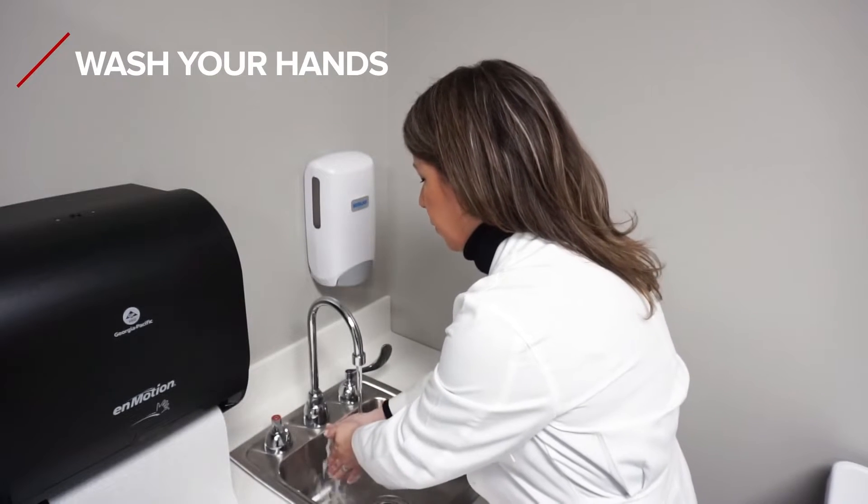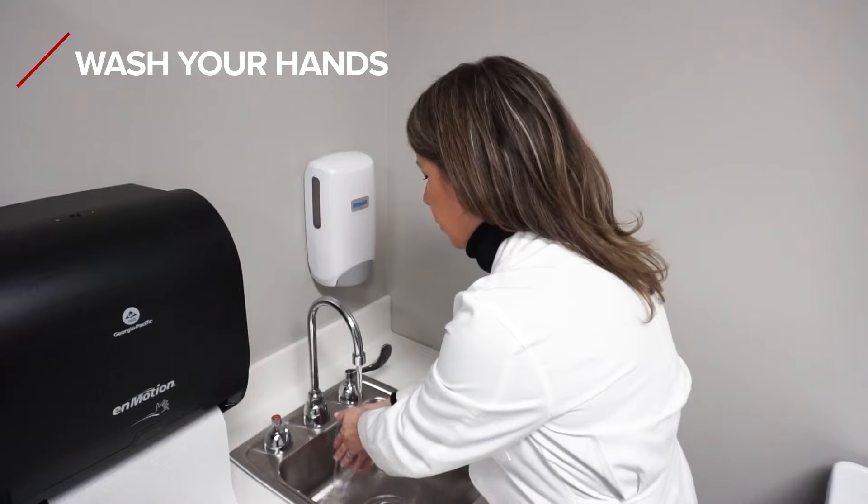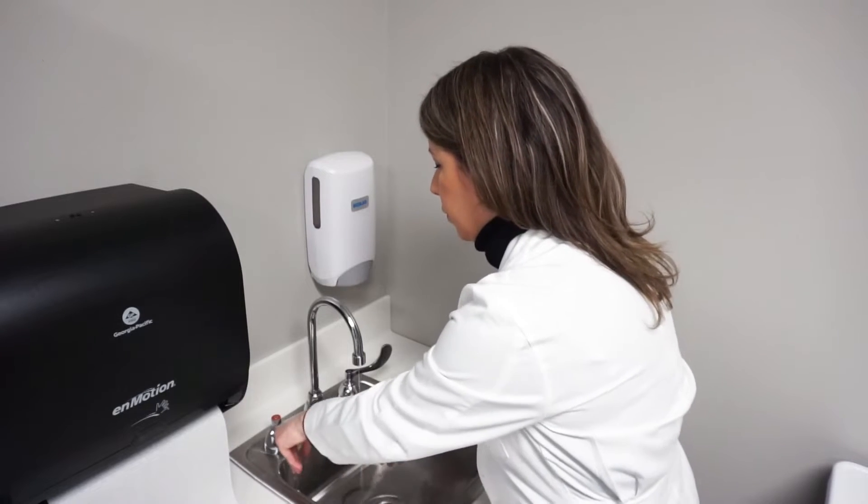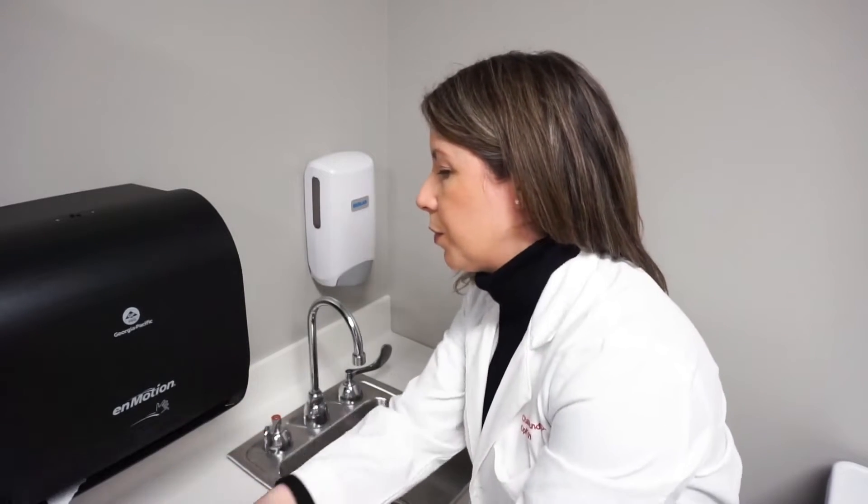It's important to wash your hands before applying your lenses or removing your lenses with a non-moisturizing soap and then thoroughly dry with a lint-free towel.